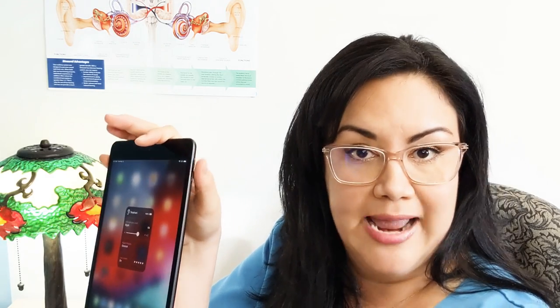You can take your iPad or your iPhone and set it by a talker at the opposite end of a table that you're not hearing so well. Keep in mind you can control the volume of this conversation with the side buttons on your iPhone or iPad. This is a great financial alternative to investing in a maker remote microphone — those tend to be a little bit pricey. If you're maybe mild to moderate and you just need a little pickup in the signal or to listen to a talker at a distance, this is a great option that's already part of your hearing system.